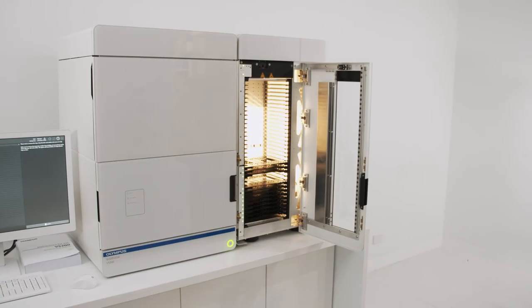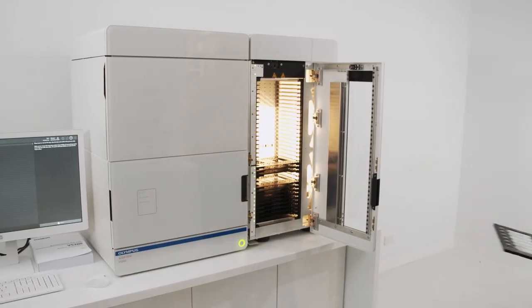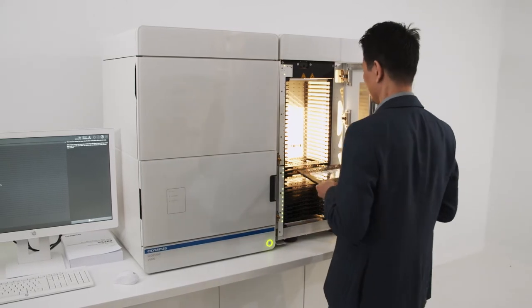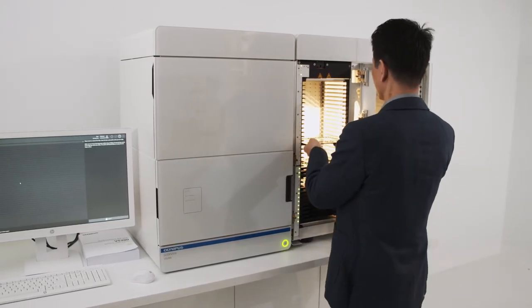We are about to show you in the next five steps how you can get a whole slide image with the Olympus VS200 slide viewing system.